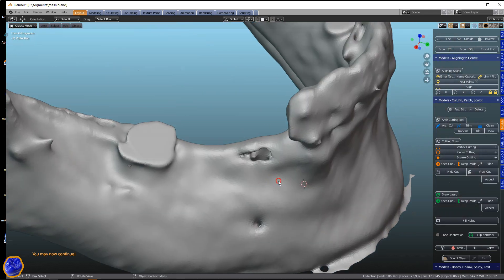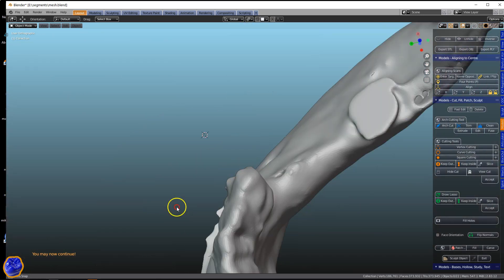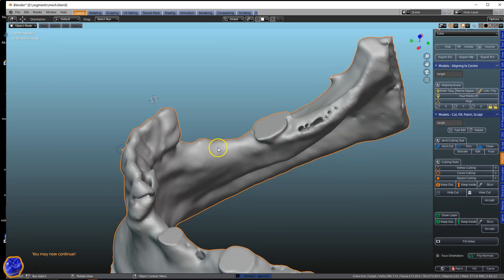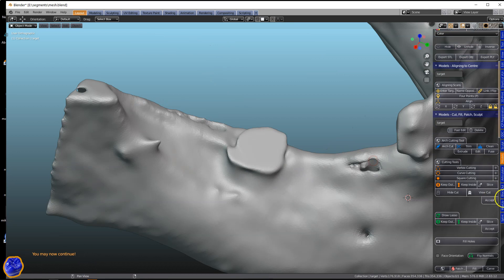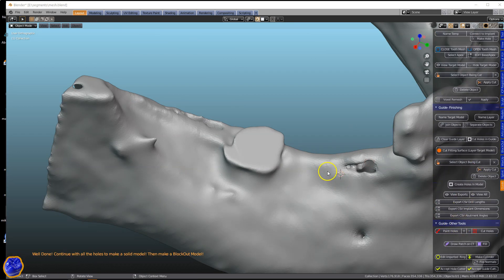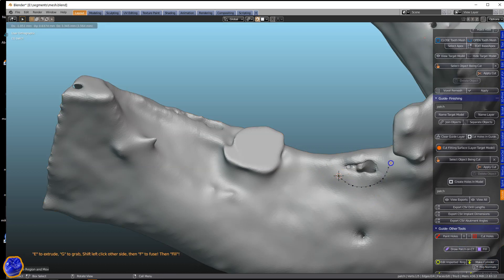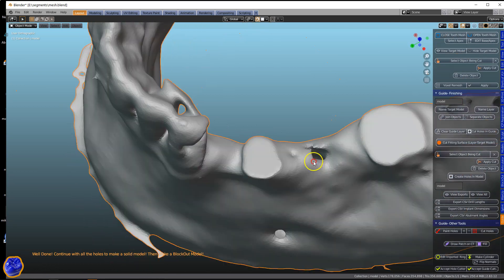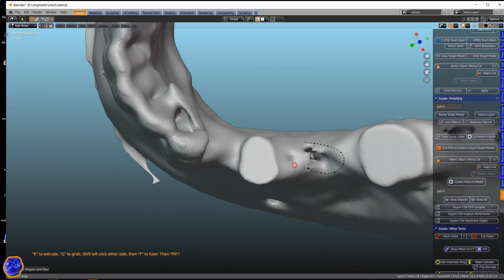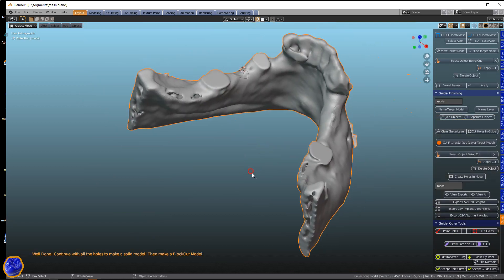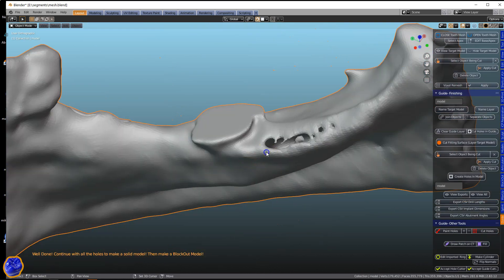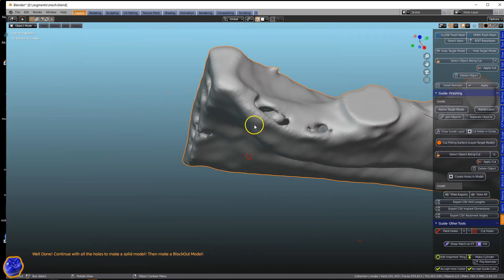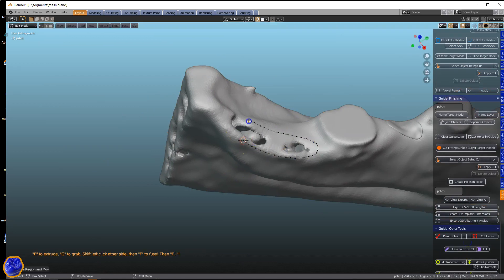So this is now almost ready. Because we want to patch up a few things. So in the guide module at the bottom, where the other tools are, there's a patch up tool. Simply outline your hole and then click on Fill. This is very simple to use. So once we've got that done, we're going to then offset the model.